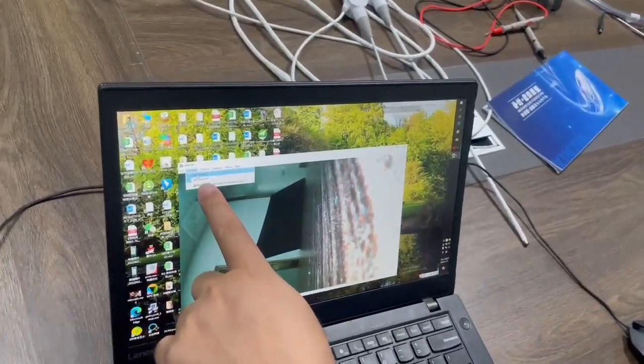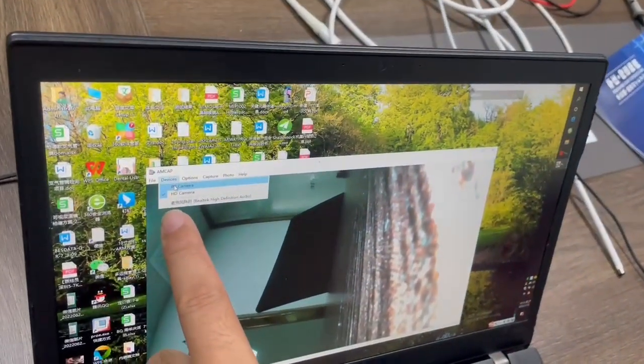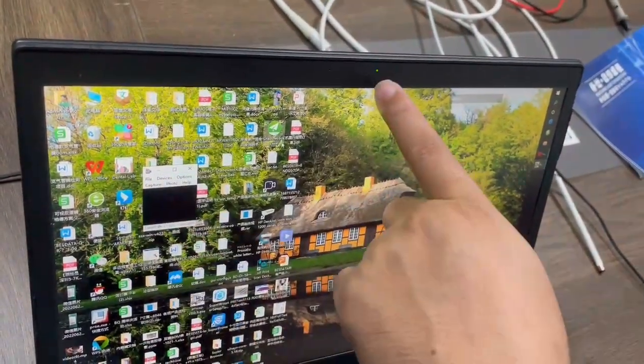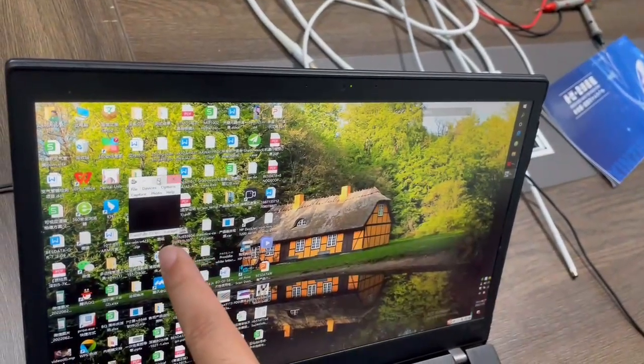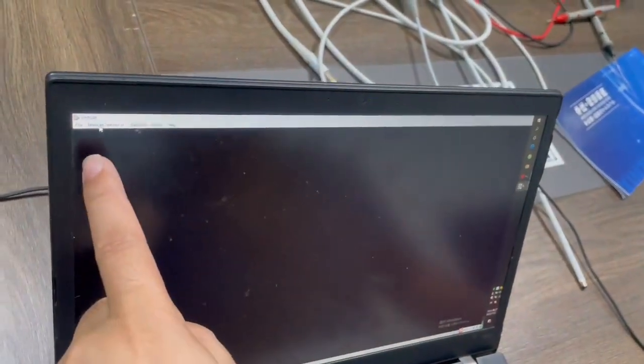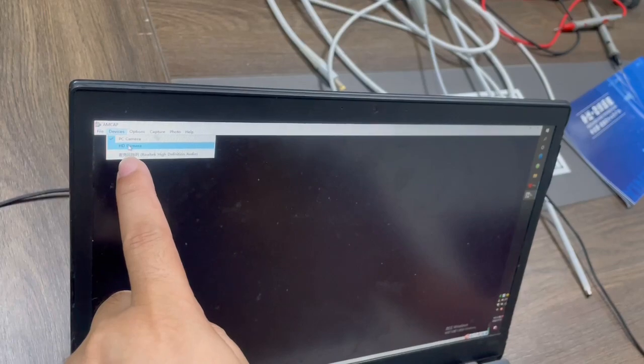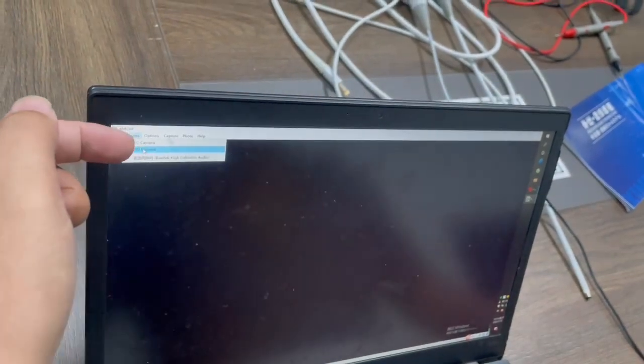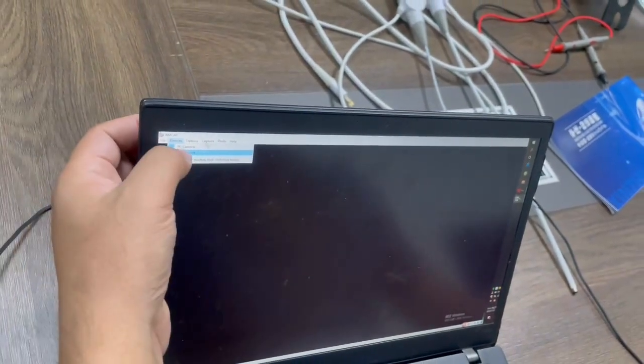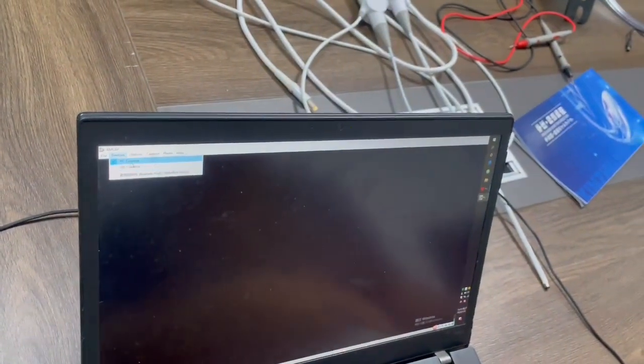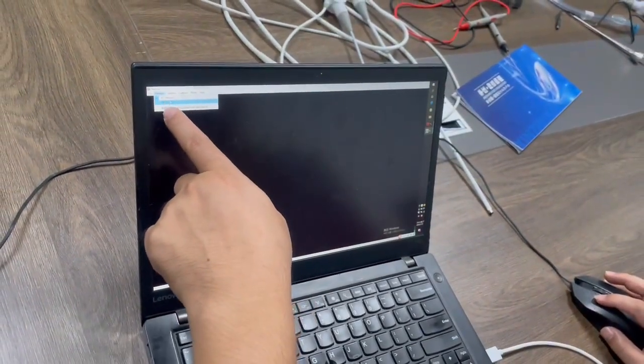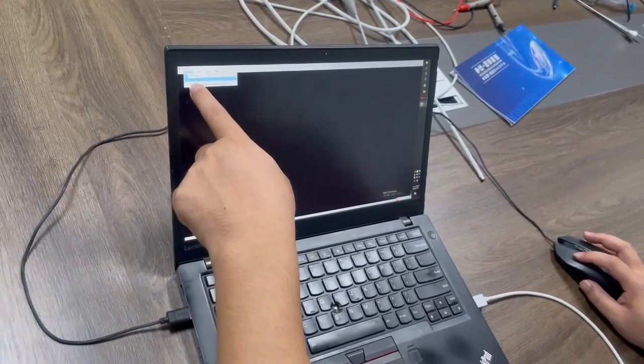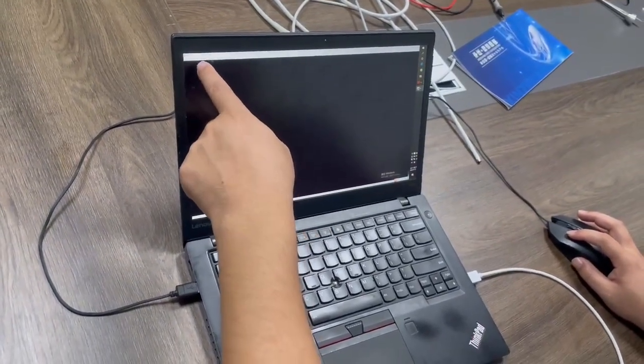You can see here. Devices: if PC camera, it's this camera. And if we choose another device, it's HD camera or another camera. If the computer can detect the camera, like this one is a camera and this one is another camera, we will choose HD camera. Choose the device.